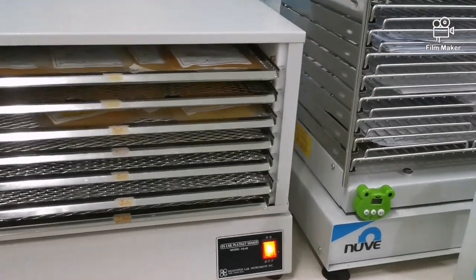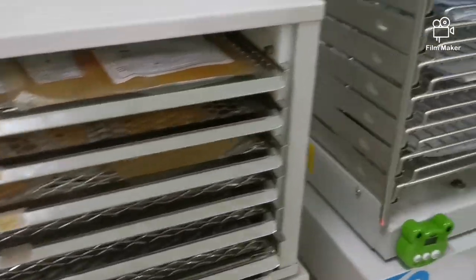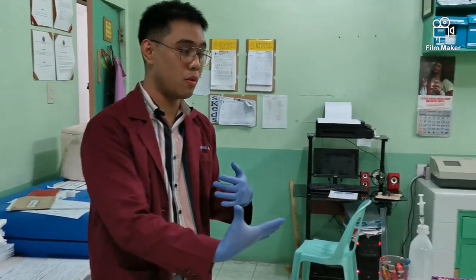Ayun, ito yung mga request form. So, blood bank is one of the sections of the clinical lab na maraming mga papeles, okay? Kasi nga, this is actually the most crucial or the most critical section of the clinical laboratory, okay? Marami kang ginagawa dito like testing, kasi nga life and death ang nakasalalay dito. Kapag mali yung isinaksak mong blood, pwedeng mamatay ang ating pasyente.